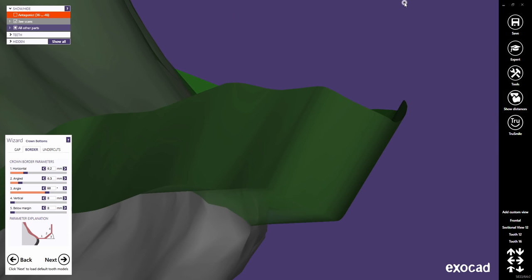Let's come back to the default settings. The slider 'Don't block out zone near prepline' defines an untouchable zone around the preparation margin where the crown is never blocked out. You can see how the upper part is blocked out, but as soon as the untouchable zone is reached, the crown bottom will go back to the preparation. Note that these settings may create undercuts in the crown bottom marked in red — it might not be possible to produce this kind of restoration with 3-axis milling. The default value in our generic version is 0.1 millimeters, meaning just a very small area at the crown margin has not been blocked out.